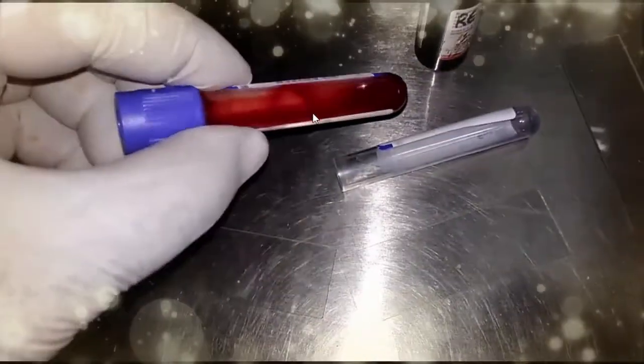Hi, let's learn about observation of microfilaria, live and dead, under microscope.